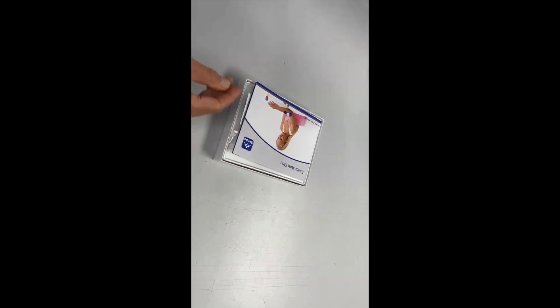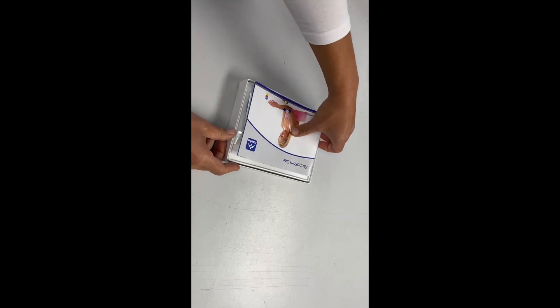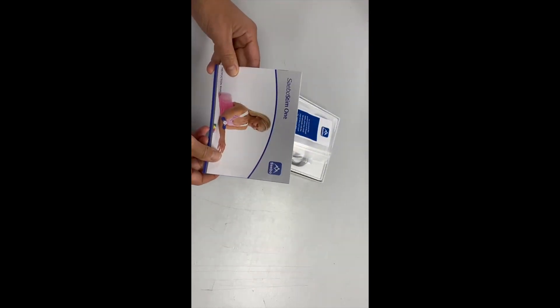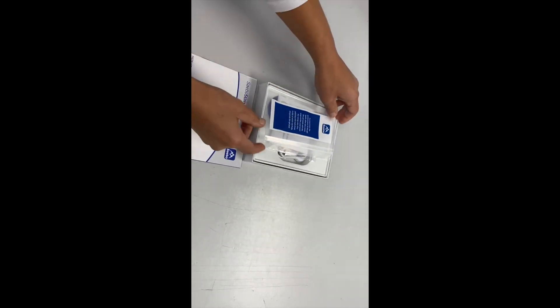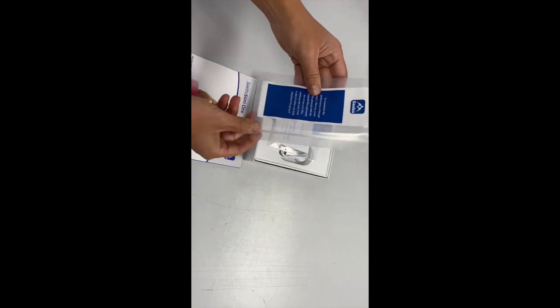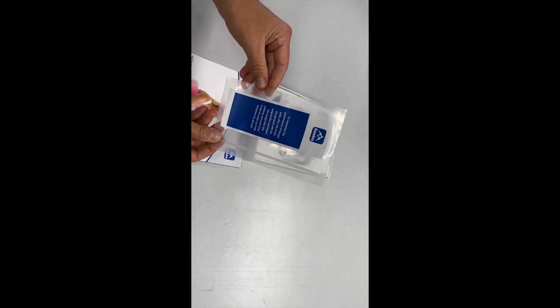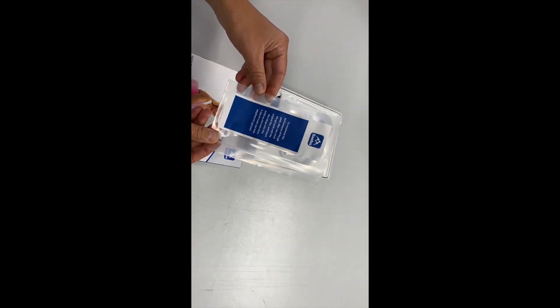When you lift the lid off your device, you'll have your user manual. You have a ziplock bag to keep the device in to stop the gel electrodes from drying out.